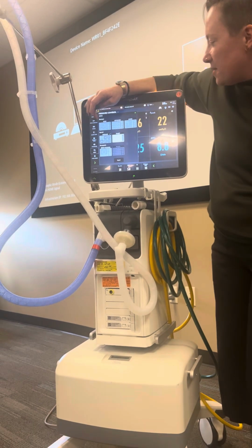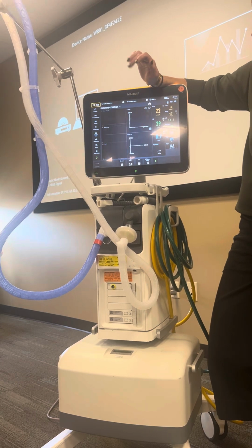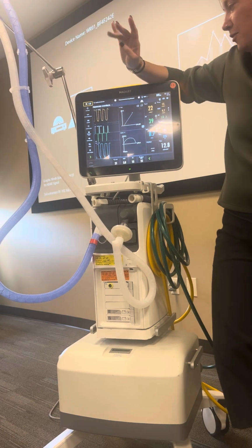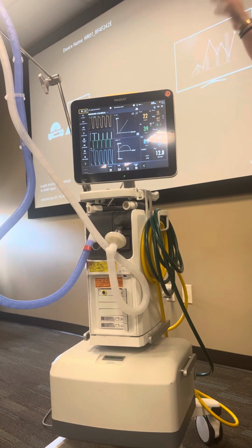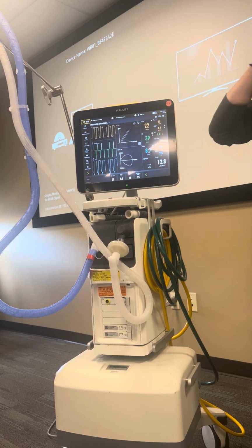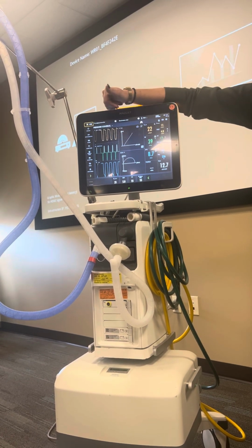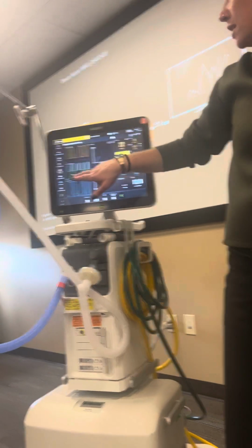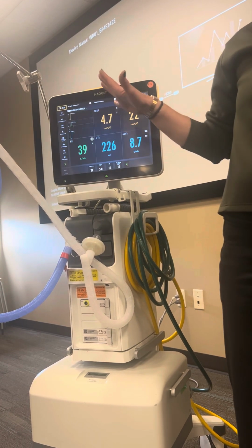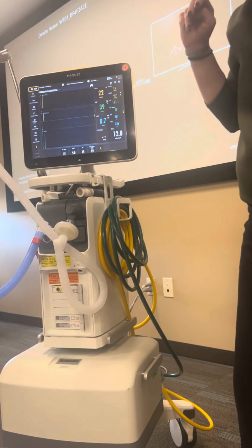But most of the time we're going to be venting in probably either advanced or loops. So we're going to look at our loops and our scalars to get an idea of the pulmonary pathology, and they're going to look insane because that's a reservoir bag right now instead of a lung. But this is probably where you're going to have your settings, so that if there is a problem and you have to screenshot it or record it, whoever you're sending that screenshot or recording to is going to have this information. If you are troubleshooting something and you're just giving them this, that's a partial picture. So I do recommend hanging out in either advanced or in loops.